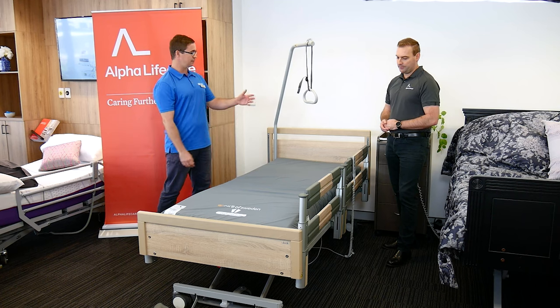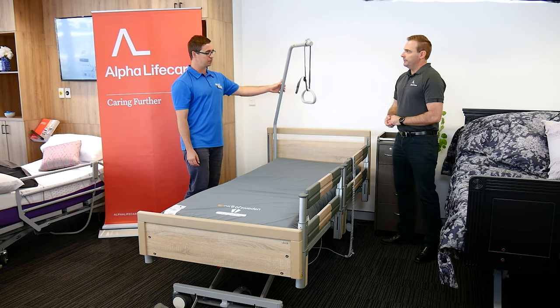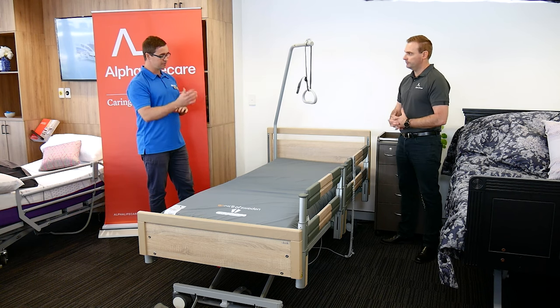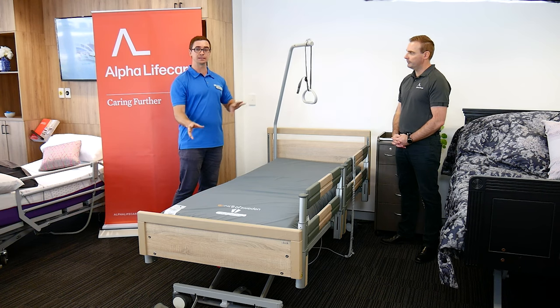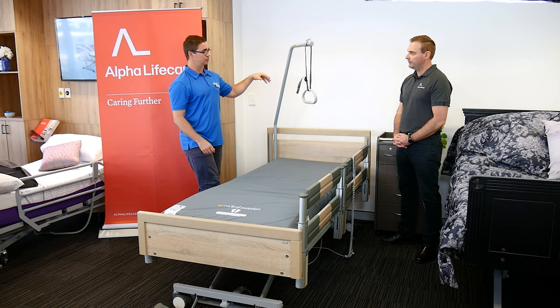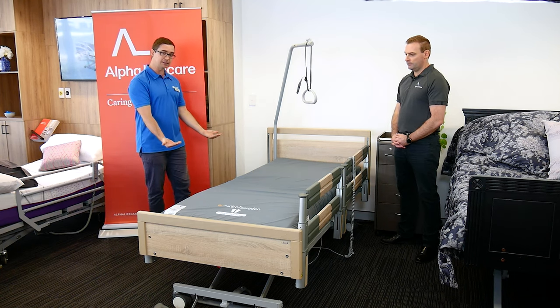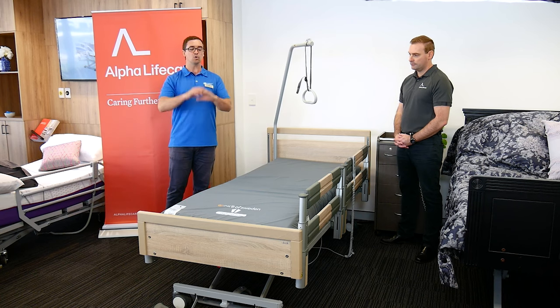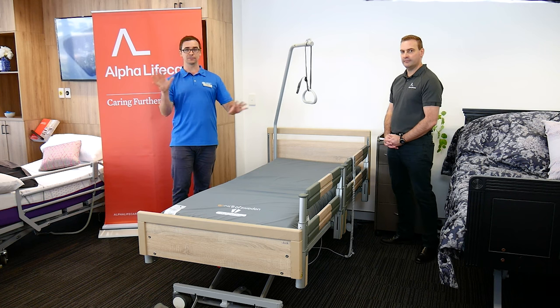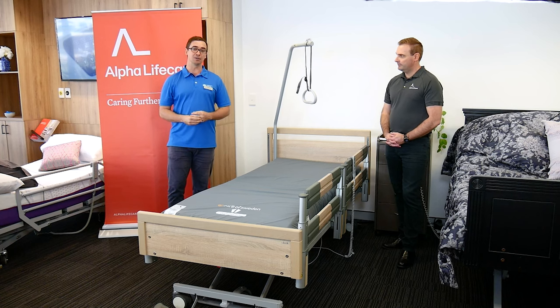We also have what we would call congruency with other pieces of equipment, such as the monkey bar here. From an occupational therapy and physio point of view, we're always looking at what other pieces of equipment may be congruent — not only things that can insert into or attach to the bed, but also under-bed clearance for lifters and all different types of equipment. Hopefully that gives you an understanding of all the different considerations we have with beds, this one being a fantastic example.